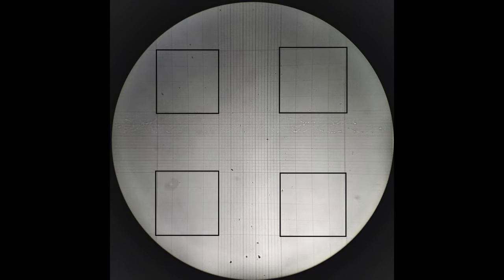First locate the large squares at the four corners of the counting grid under low power of the microscope. You may refer to my previous videos on hemocytometer to see which of the squares in the counting chamber are to be used for WBC counting.